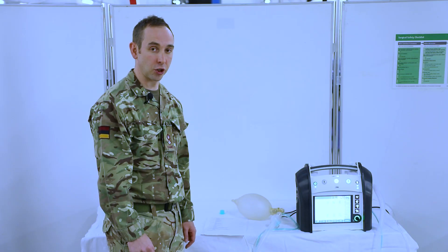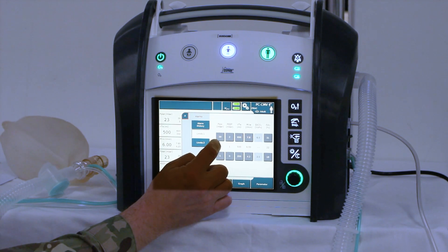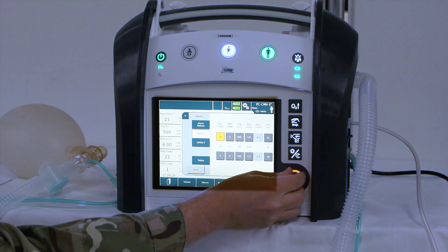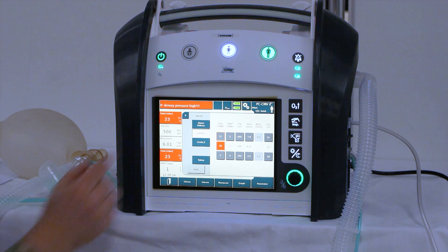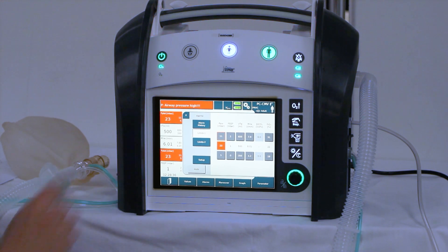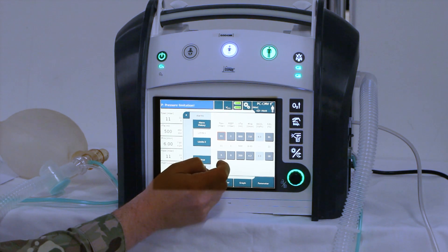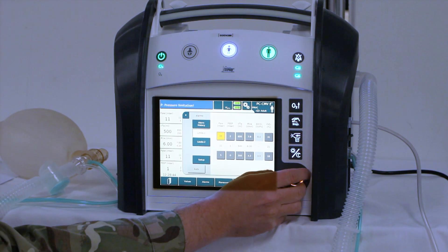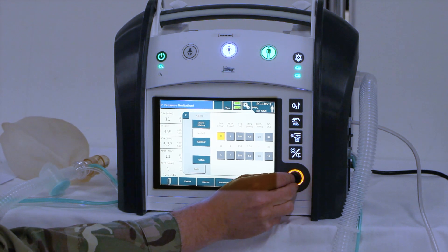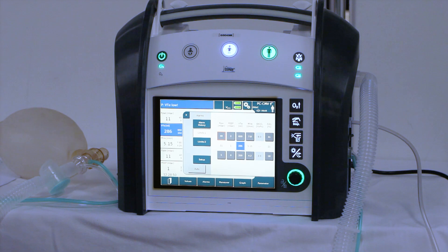Next, we're going to do a high pressure alarm check. Click on alarms and look at the pressure airway — turn it down to its minimum setting and click confirm. You'll get a red airway pressure high alarm with a red alarm across the handle. Once this is complete, re-select the upper airway limit back up to 40, which is its default setting. And that test is complete.